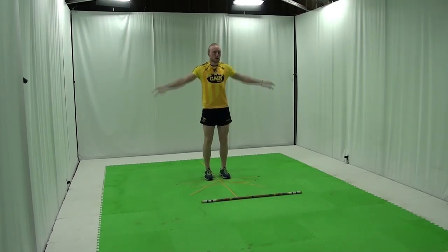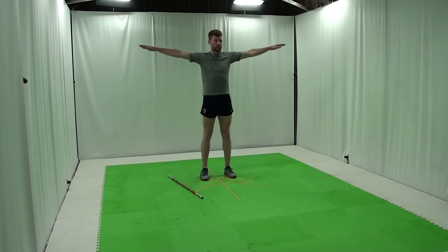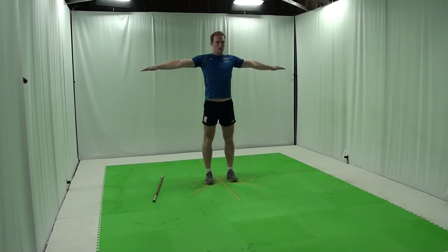The ability for a team to have everybody in the team analysed very, very quickly enables the sports scientist or clinician to determine if there are any issues in terms of movement patterns or functional capacity of any of the players. Now, of course, this has been possible for a very long period of time, but it's just not practical because it takes about 2 hours to calibrate and marker up a subject. The organic motion system can actually take about 50 players or athletes every 2 hours.